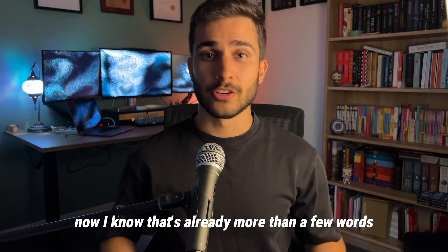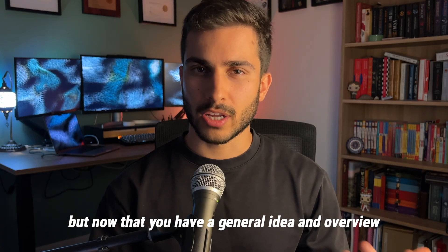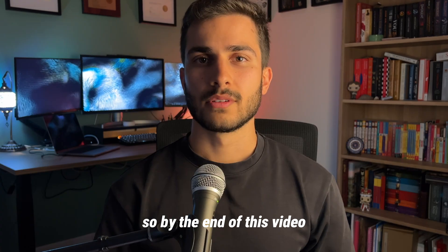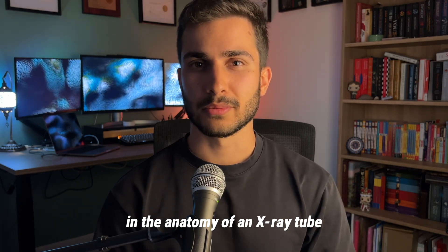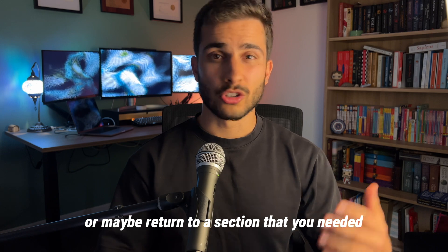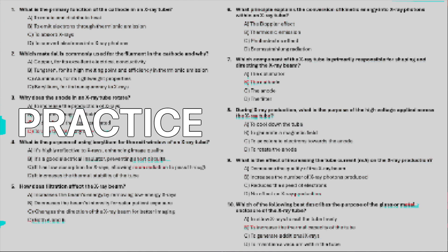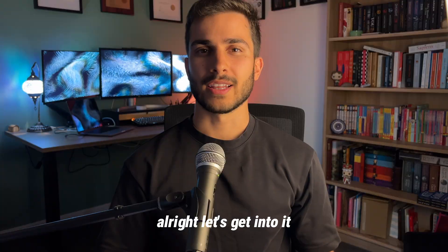That's basically what's going on. Now I know that's already more than a few words, but now that you have a general idea and overview, I'm going to take you through each component and tell you what it does and what its purpose is. So by the end of this video, you should be an expert in the anatomy of an x-ray tube. I've put timestamps below so you can skip around or maybe return to a section that you needed. Also stay tuned for the end where I'm going to challenge you with some practice questions. Let's get into it.